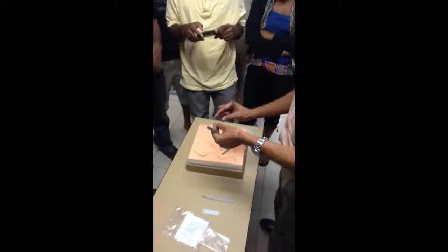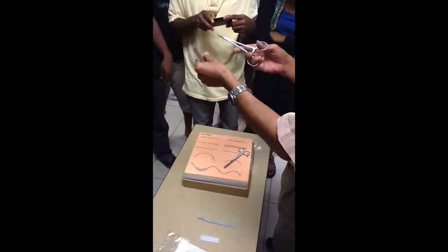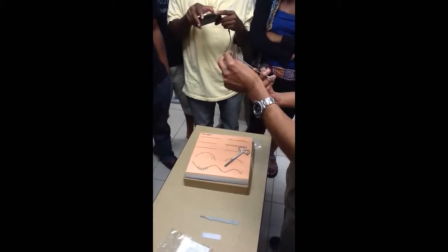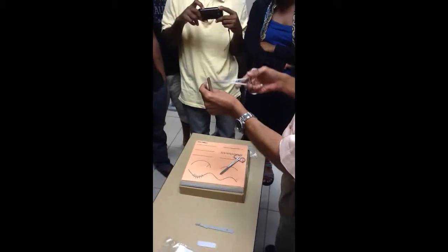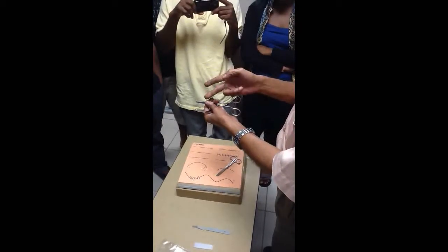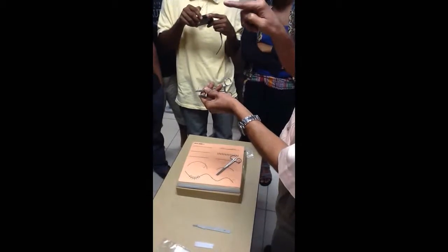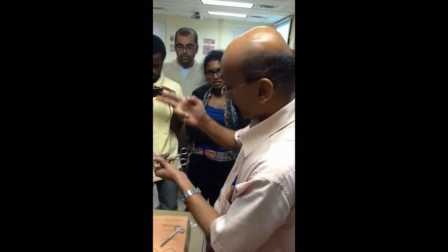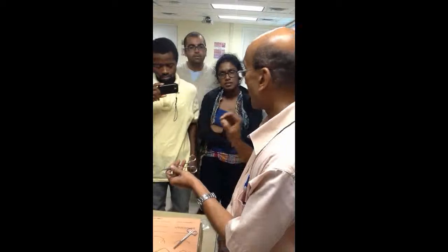So for those of you who have come today, this is a needle. There are two types of needles — one is a cutting needle, the other is called a round-bodied needle. How do we determine a cutting needle or a round-bodied needle? It depends on the cross-sectional appearance. If you were to take a cross-section through this needle and look at it end-on, if it appears triangular in shape, it is called a cutting needle. If it appears circular in shape, it is called a round-bodied needle.